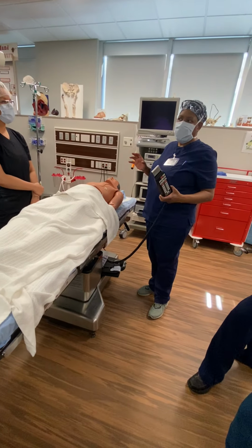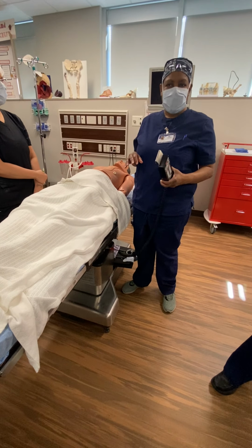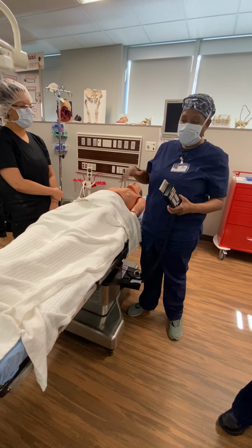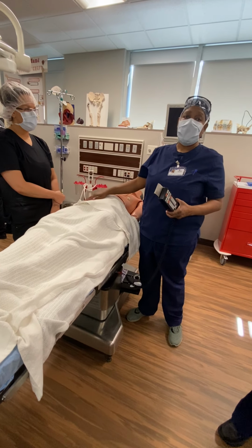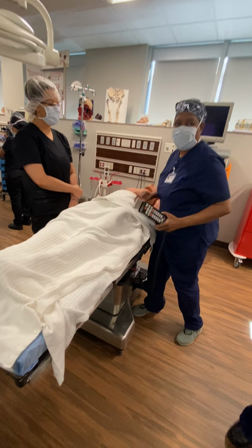Always, okay? If you're helping your nurse out, or if you're in the room and they're bringing a patient in and they're about to transfer him to the OR bed, if your nurse hasn't checked the OR bed, just check it, just move it to see if it moves.